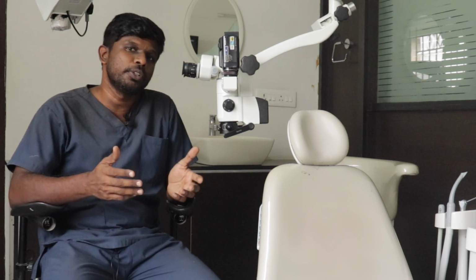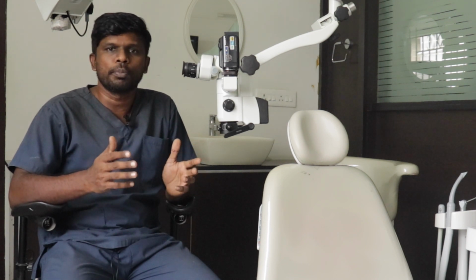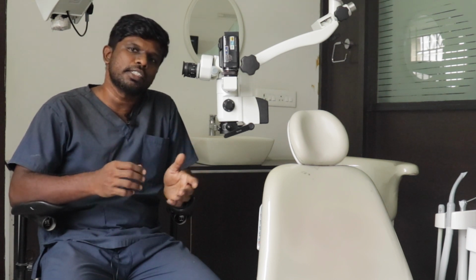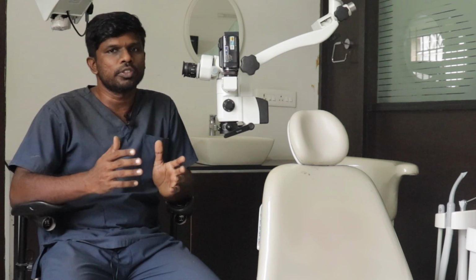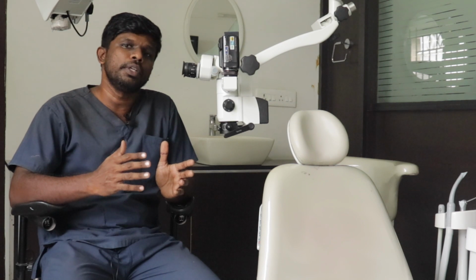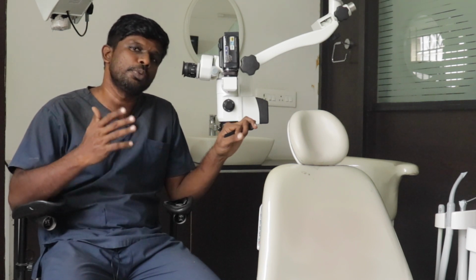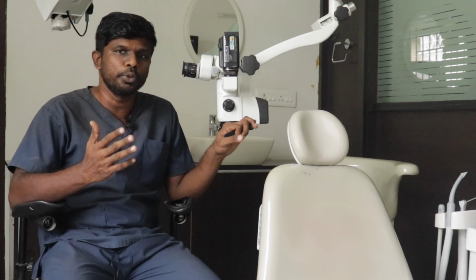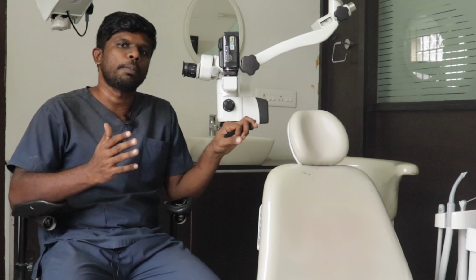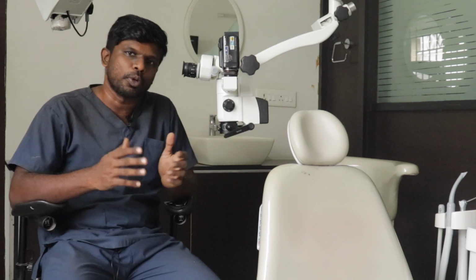In this episode, we are going to talk about the advanced ergonomics in dentistry. Yes, in one of our previous Endo Tales, we already discussed the basics of ergonomics in dentistry. In this video, we will be demonstrating how your ergonomics can be improved further with the use of magnification, especially microscopes. So, I'll be giving a demonstration on how to improve ergonomics with the use of microscopes and magnification, but even people who use loupes can also apply the same. So without wasting much time, let's straightaway watch the video.